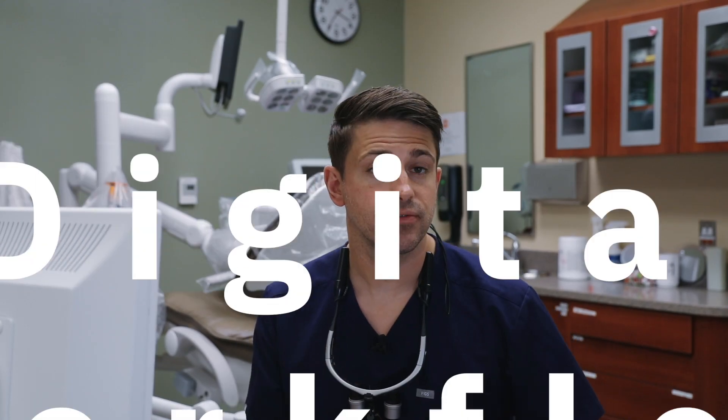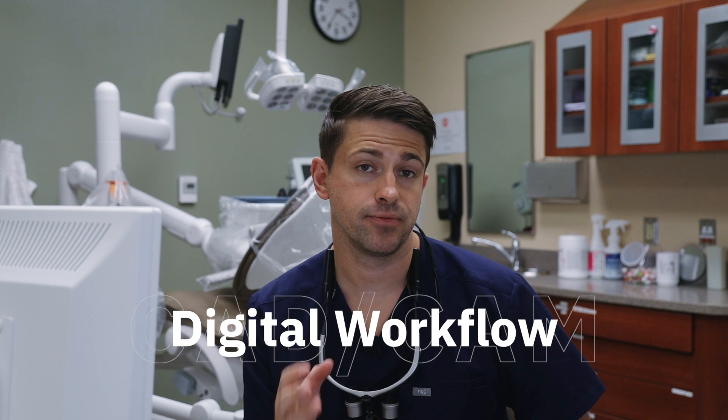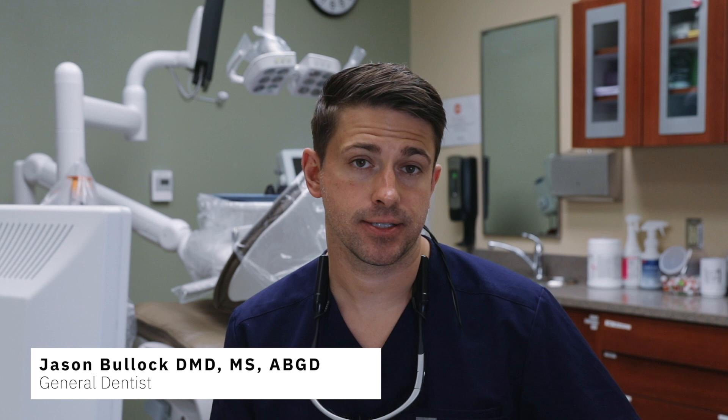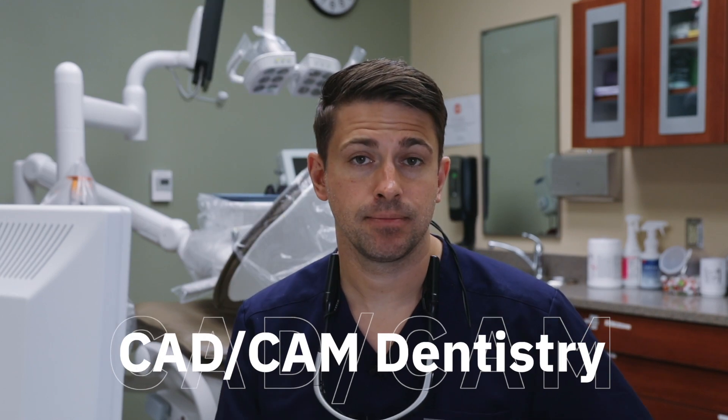CAD CAM Dentistry represents an alternative digital workflow for traditional or conventional methods of doing dentistry. I've been using CAD CAM technology for about eight years now in my dental practice, and although my practice is not completely digital, I do find myself using this technology more and more. In today's video we're going to take a closer look at CAD CAM Dentistry.